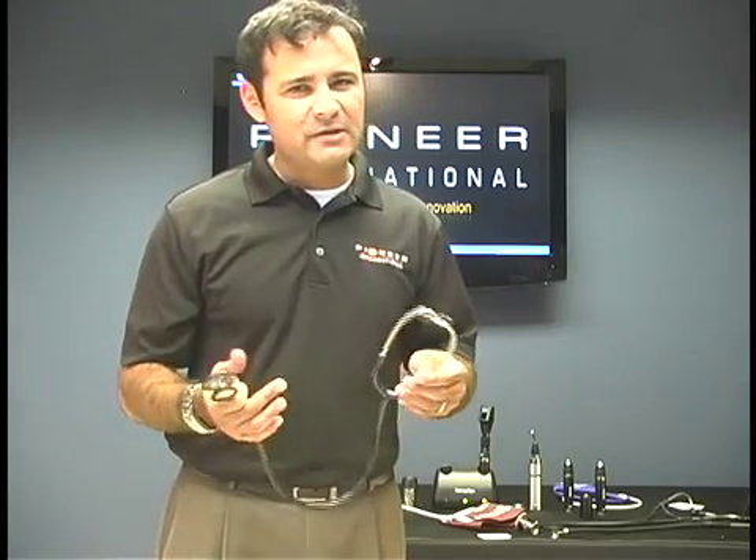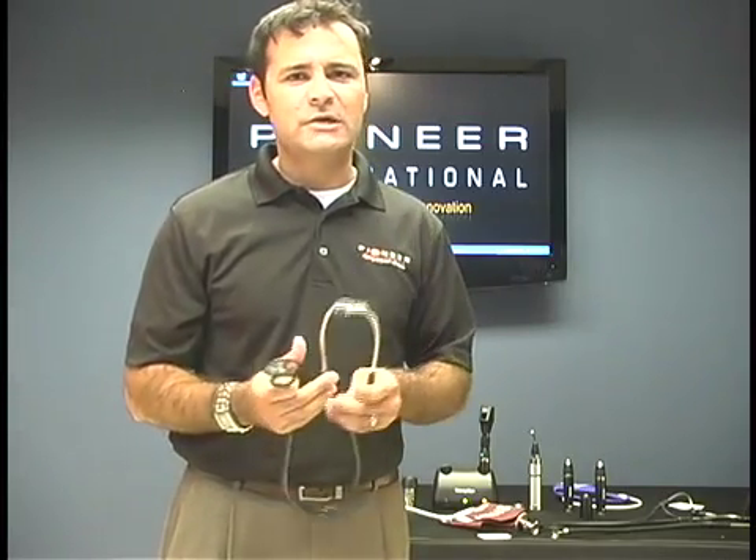It's a quick shortcut, but it might hinder you when it comes to hearing. So make sure if they've got a listening device at their table that you try it out.